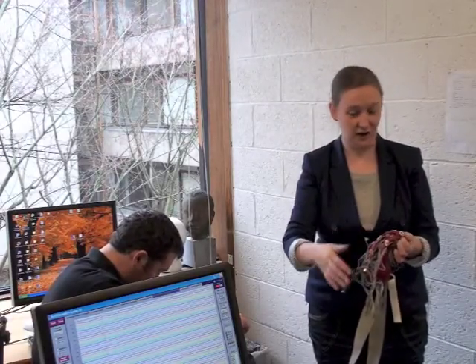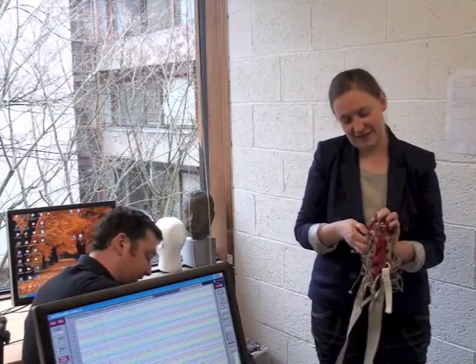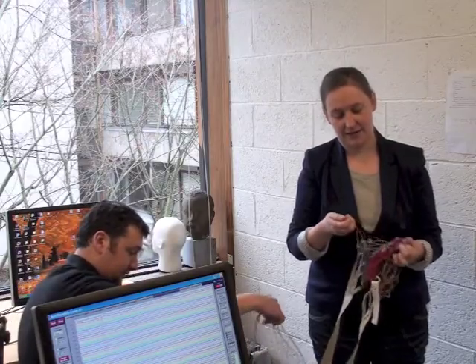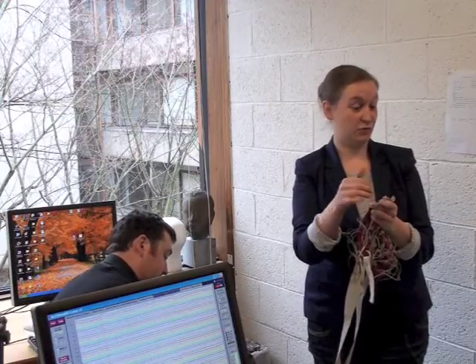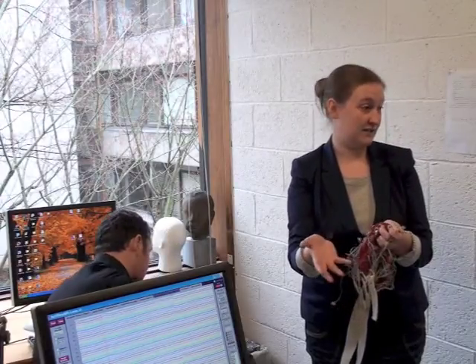You have to wash those. Obviously don't wash the plug parts. That's dangerous and stupid. So you take these to the nearest bathroom and run each of them under the sink and give them a quick clean, because they're still surrounded in a little bit of gel, and you want to rub it off with water so it doesn't set.